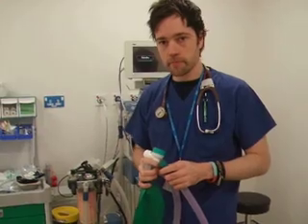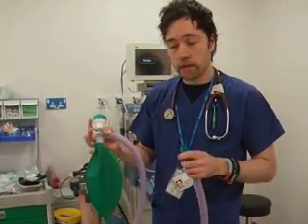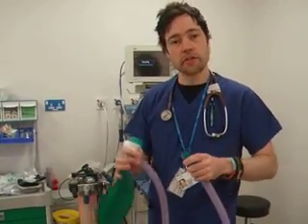And can this circuit be used in the MRI? Yes, it can — it's one of its many advantages. Thank you.